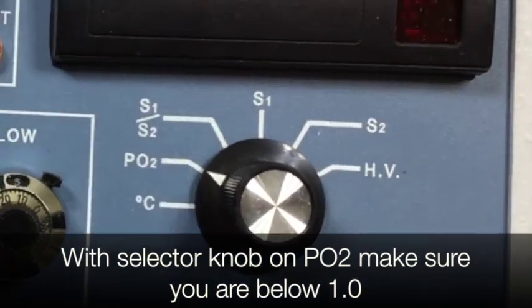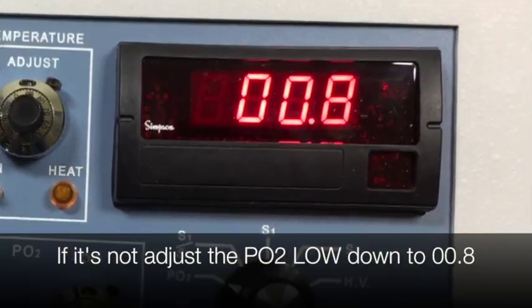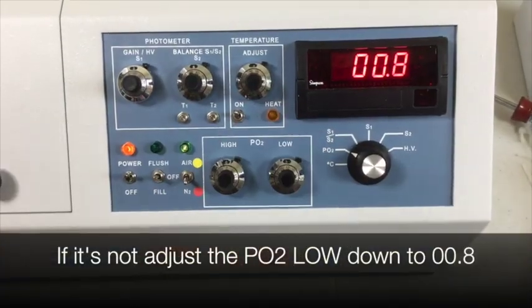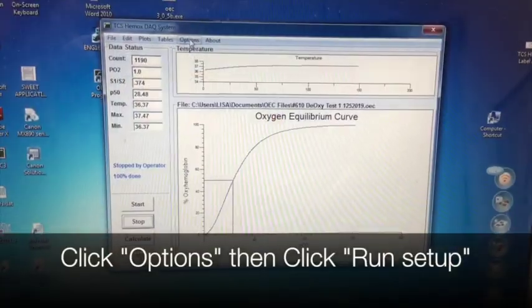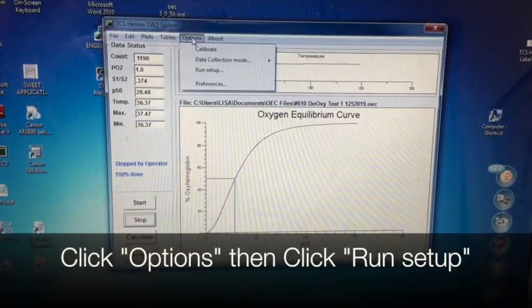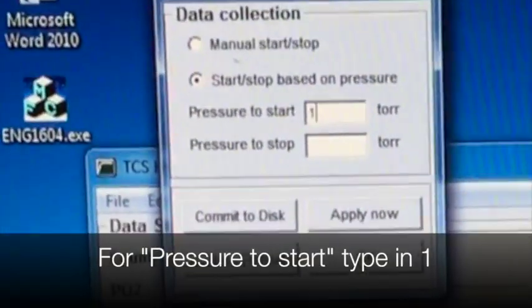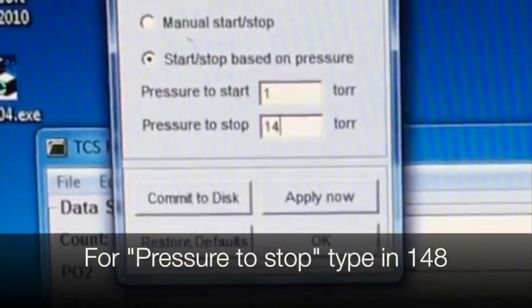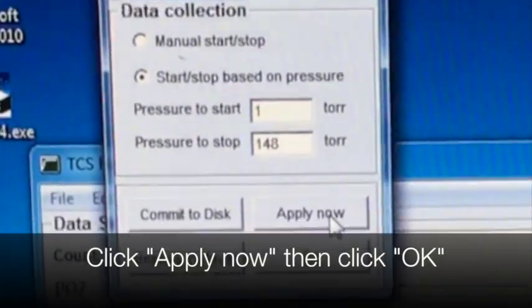Now we're going to plot the oxygenation curve. Make sure that the PO2 is below 1.0. If it's not, adjust the PO2 low down to 0.8. Click on Options, then Run Setup. For pressure to start, type in 1. For pressure to stop, type in 148. Click Apply Now, then click OK.